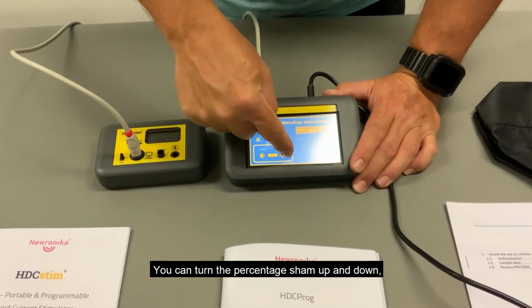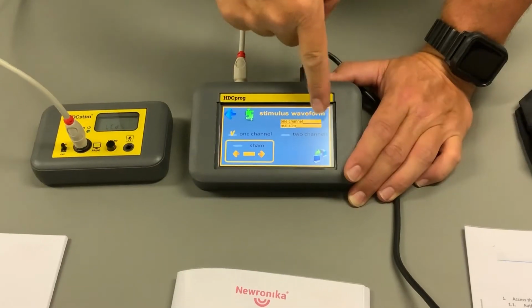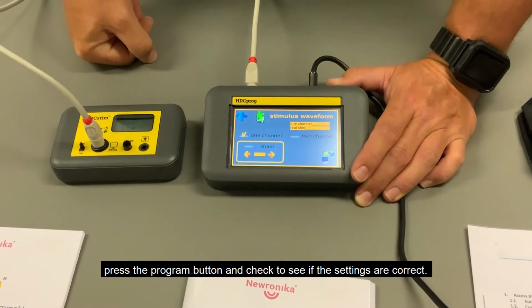You can turn the percentage sham up and down. We don't want sham if you are going to be treating a patient. In this menu it will once again show you the current settings of the stimulator. Press the program button and check to see if the settings are correct.